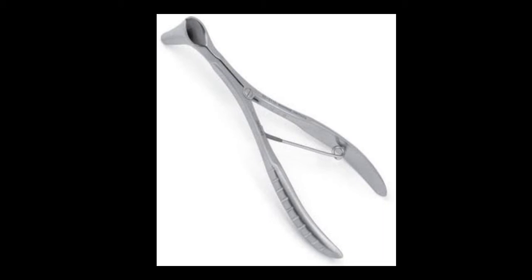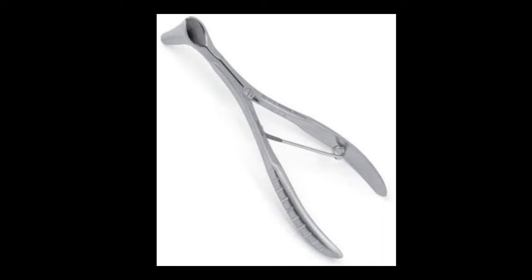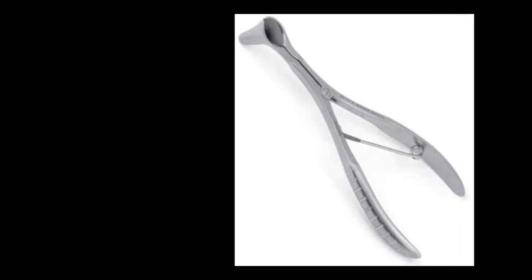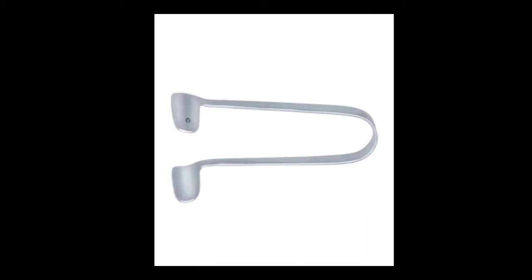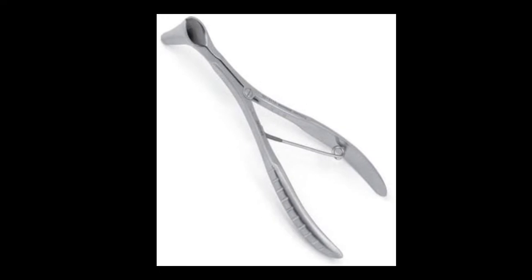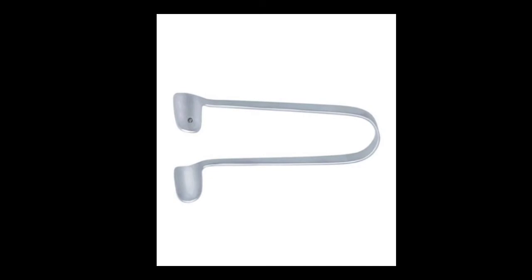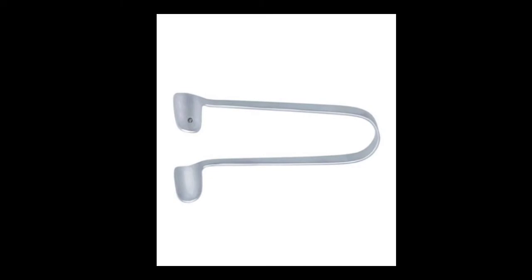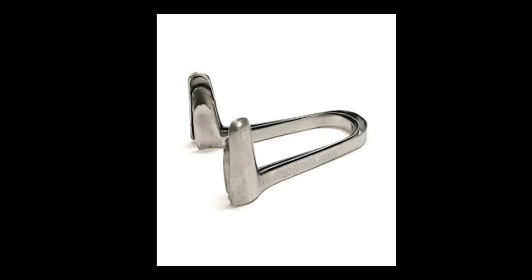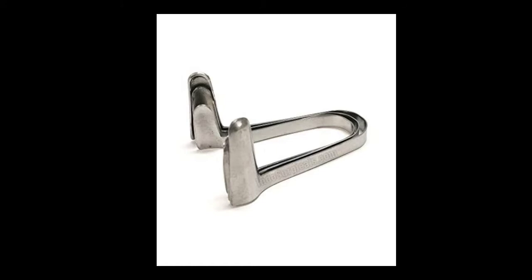This one is a nasal speculum. Nasal speculum is used for examining the nose and the nares. This is also a type of nasal speculum made up of steel.